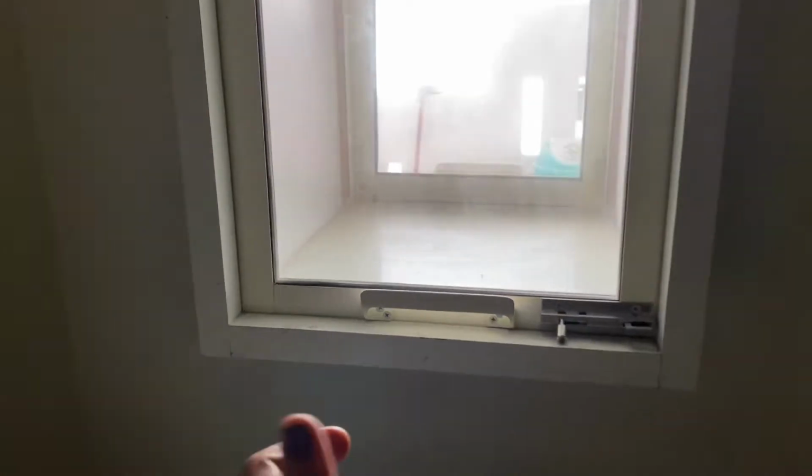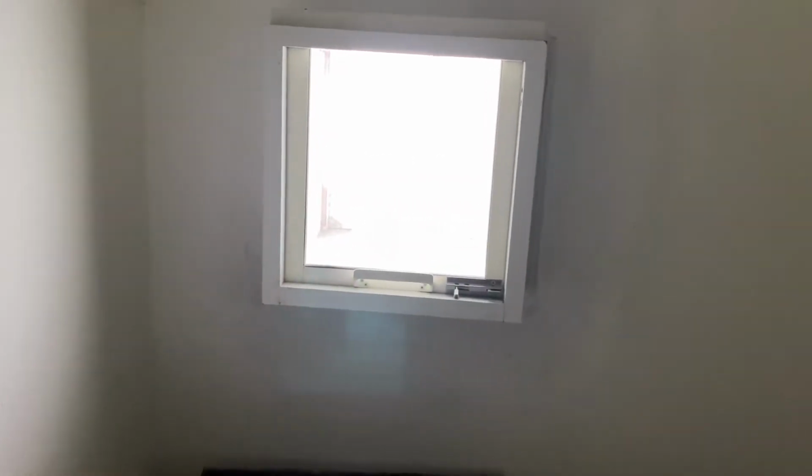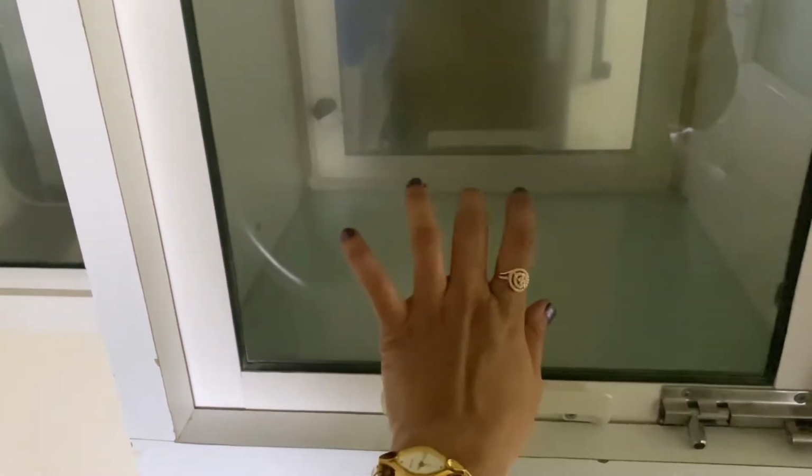This is the door, they just open it and collect. Whoever brings the samples should not enter the RT-PCR room directly, so everything is protected. After collecting the sample from here, there is another door, and the sample has to be kept inside.